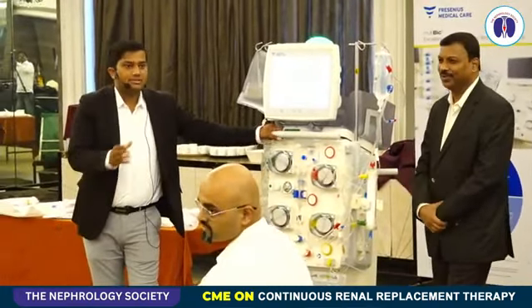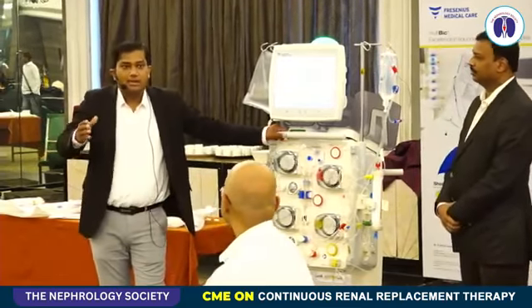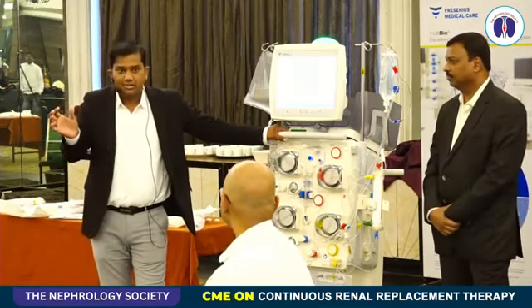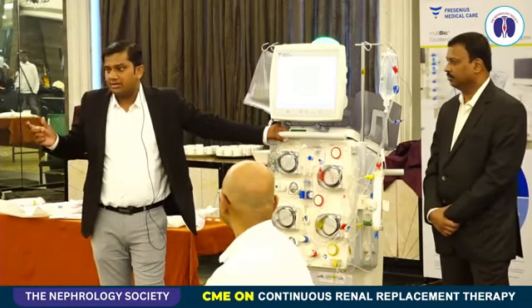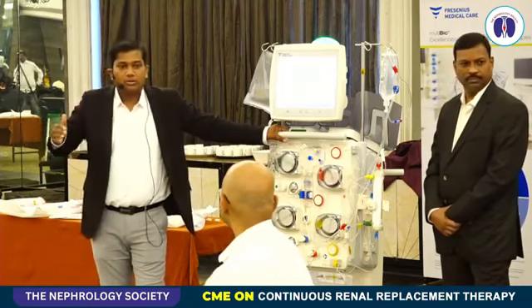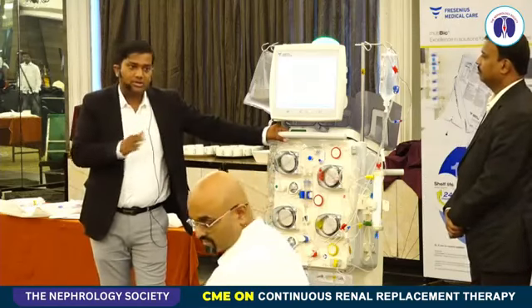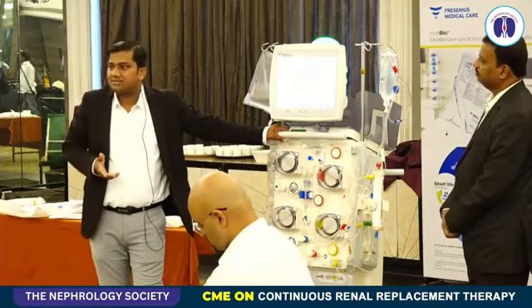No, actually, with CRRT, even we do not know how long it will take. Usually, CRRT is only beneficial when it is running more than 24 hours. Theoretically, by definition, it is like that only. Any extracorporeal device which is intended to replace a native kidney over a period of more than 24 hours is called CRRT, and that is the reason we recommend it has to be run at least more than 24 hours. Then it is defined as a CRRT.